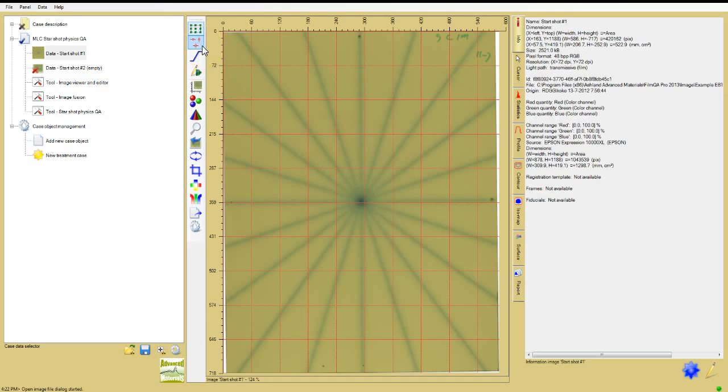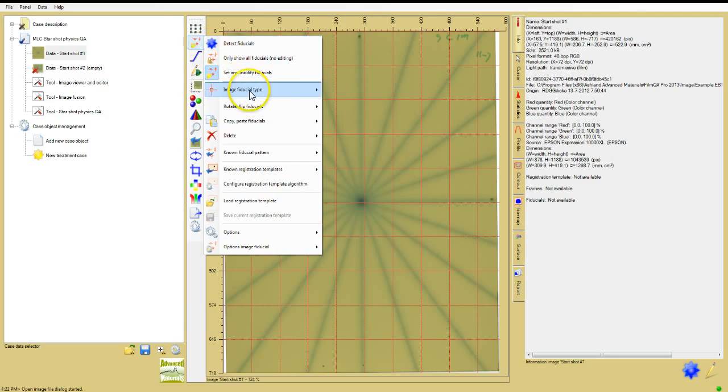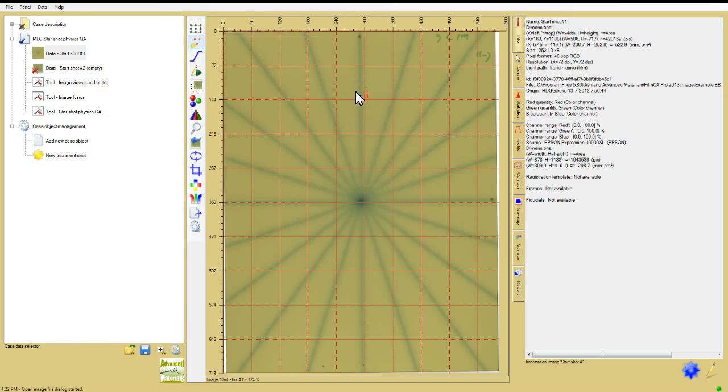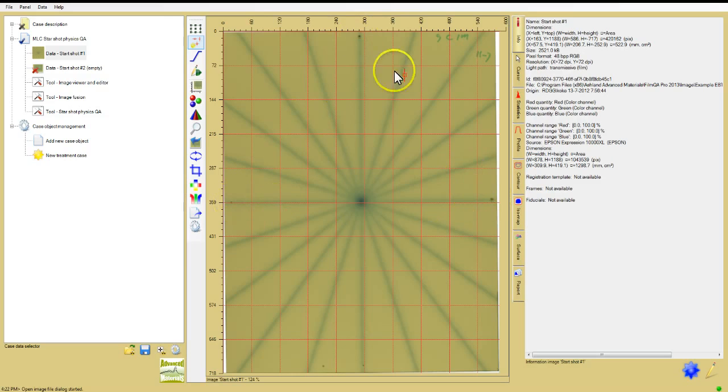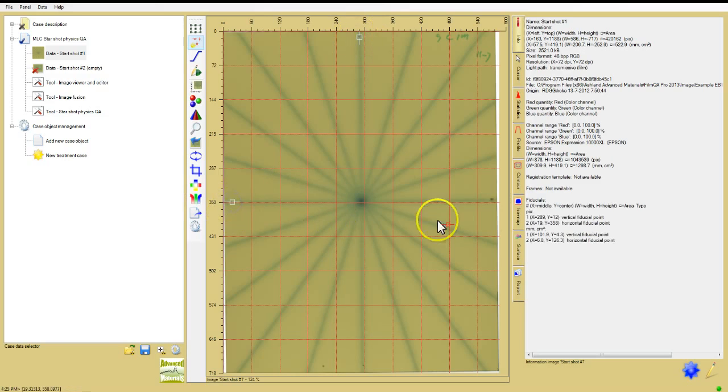Click on the icon for Fiducial Tool Management, the second from the top of the image window toolbar, and use the general fiducial point. Since the fiducial marks are near the centers of the sides of the dose film, the software senses whether a particular point is fitted in a vertical or horizontal direction, but you could force a particular selection if needed. Now point the cursor and click on each fiducial mark in turn.